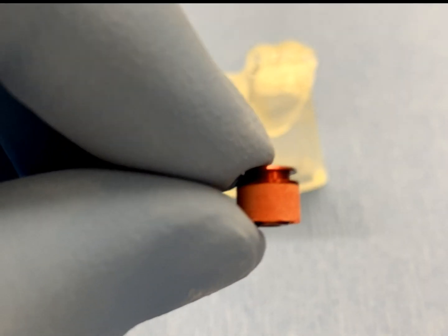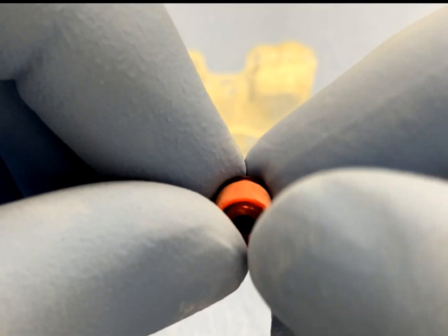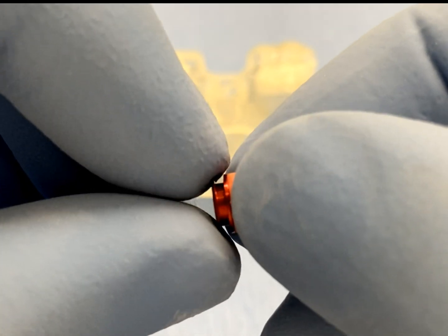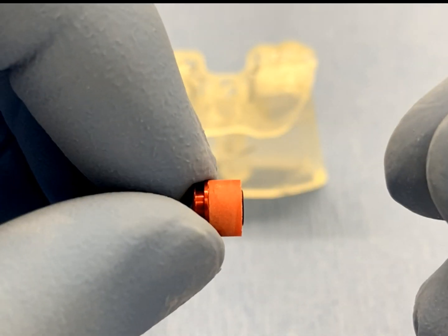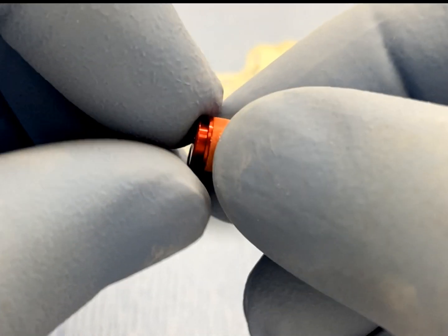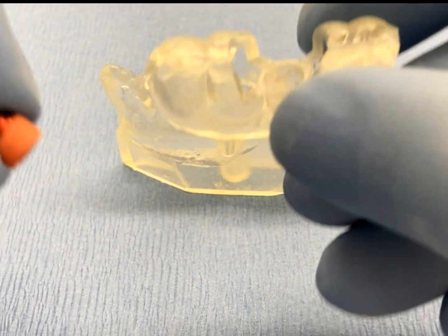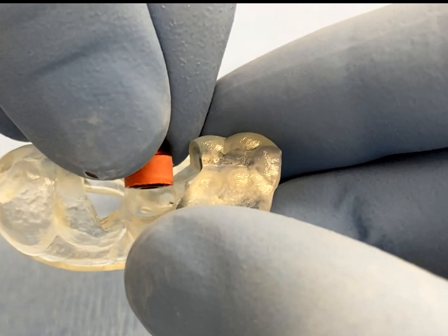The analog should be completely supported and fitting securely inside the GRS surgical ring. Insert the assembled components into the guide tube or tubes of the surgical guide and confirm a snug fit.